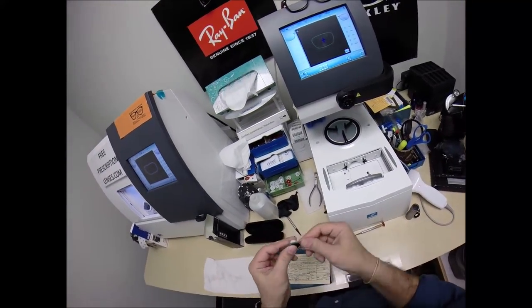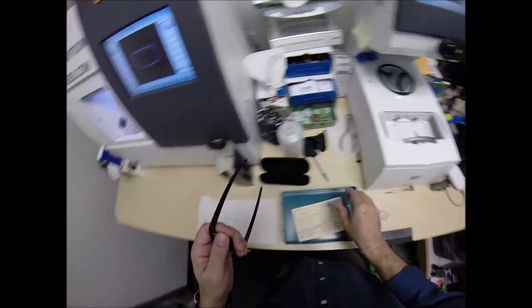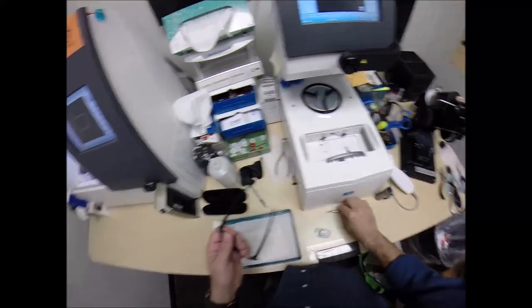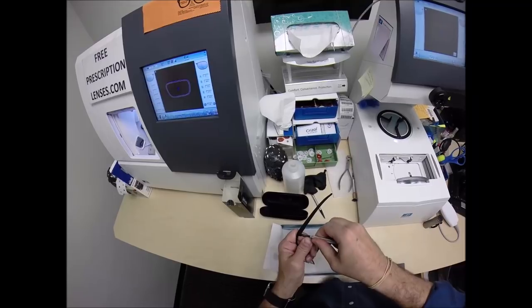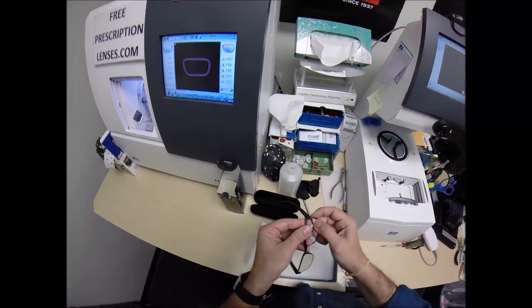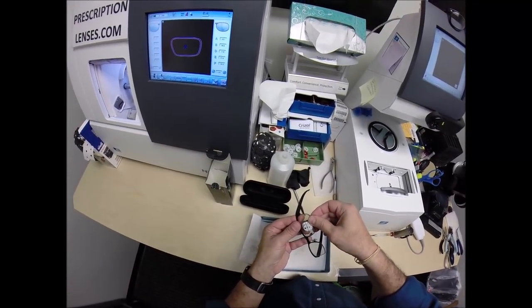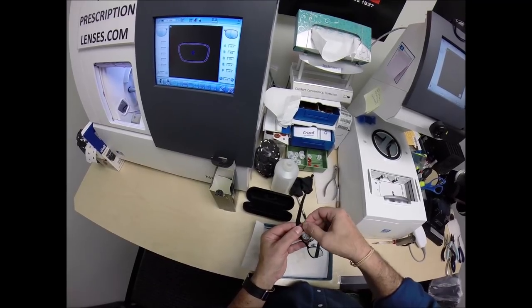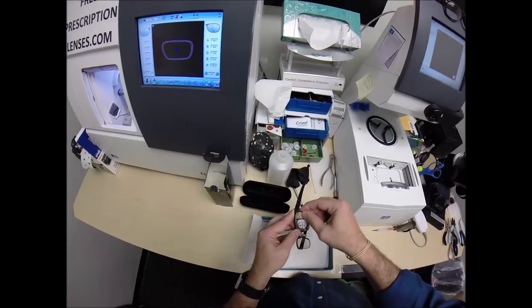So let's dry everything off. Run my thumbnail around and make sure there's no optical sawdust on the back. Where's your frame? I left it in here. Here we go. Again, cover this up. Lefty, loosey. And I'm going to go ahead and take it out all the way just to demonstrate. And sometimes I'll try and keep my finger over that while I'm working on it.